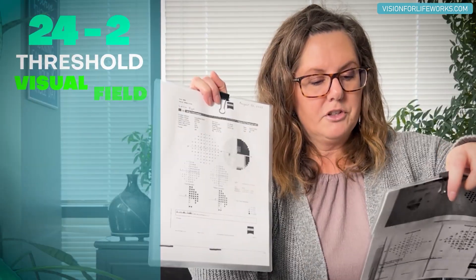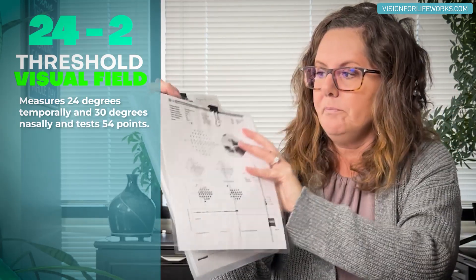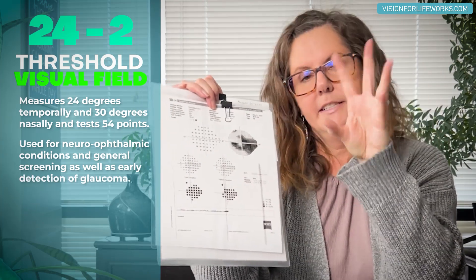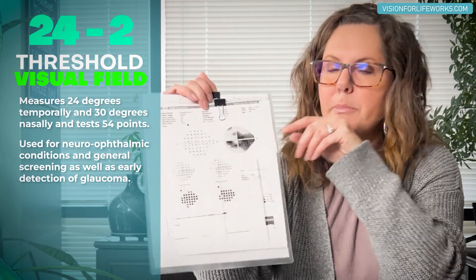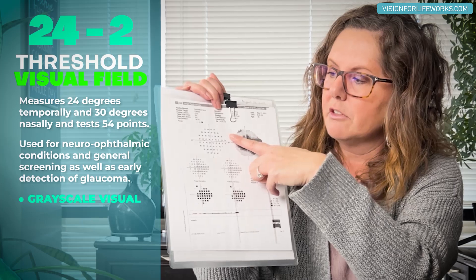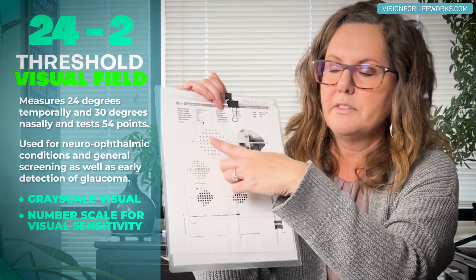There's another test similar to the 30-2 that I want to show you that can also be helpful, but it just doesn't go out as broad. It's called a 24-2. As you can imagine, it provides a little bit more centralized threshold — it doesn't go out as far as the 30-2. But you can see the similarities: you have your grayscale here and then your scale over here that tells you the level of sensitivity.